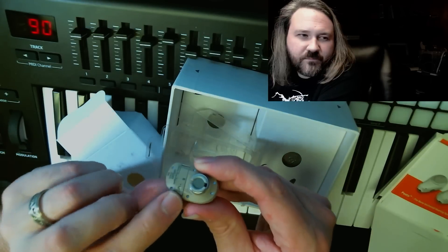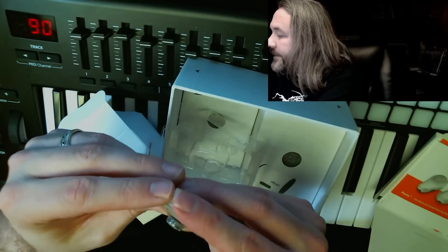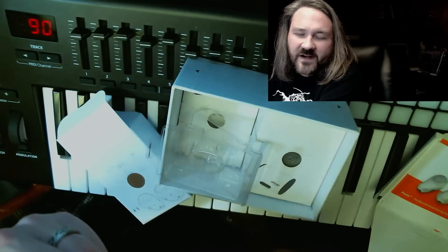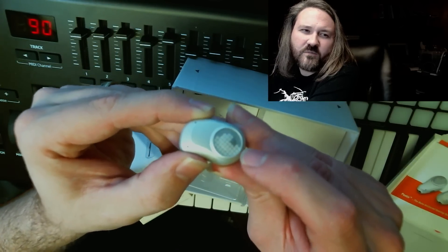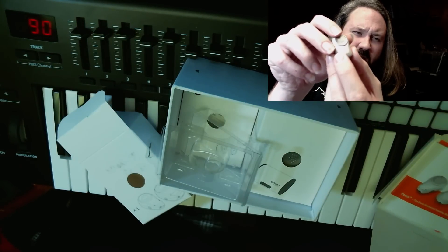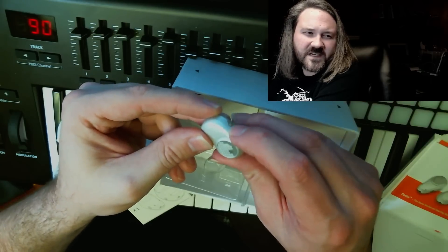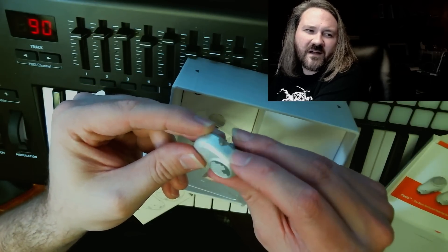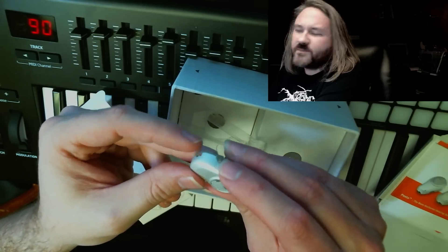There's a little battery compartment here — this flips up, and there's a tool included in the box to help you change the battery. On the outside there are really only two things you use to operate this: there's a button on the top that's just to put it on standby or mute it. And then there's also this little dial — a very small dial that goes up and down and just turns the volume up and down, so you can roll that up and down easy peasy, lemon squeezy.